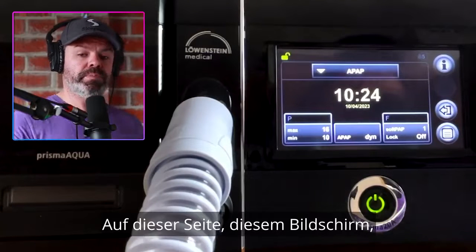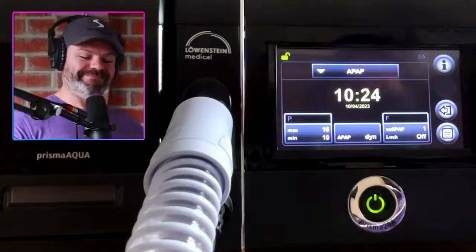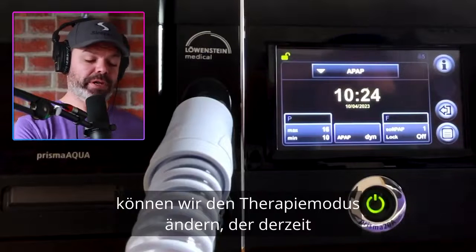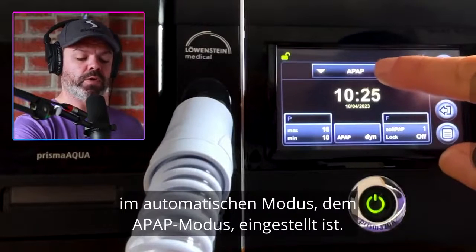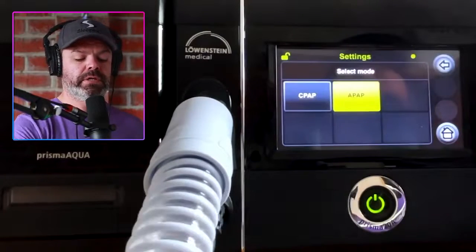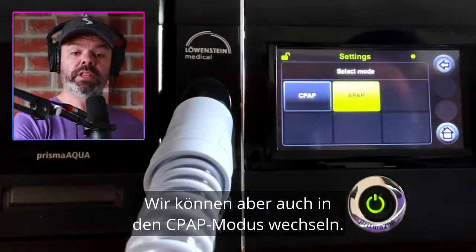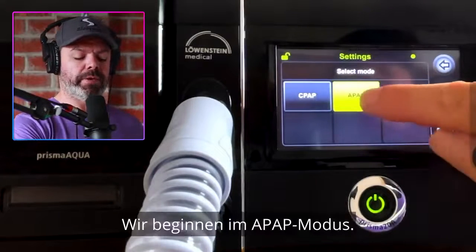So on this page, this screen, we can change the therapy mode up here. Currently in automatic mode, APAP mode. We can change it to CPAP mode if we like. We'll start in APAP mode.